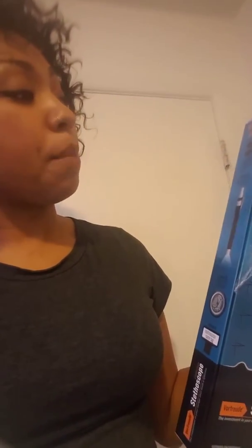I received bonus replacement ear tips, a free pupil light with batteries already included, a replacement diaphragm, and a stethoscope name tag — so this box was full of goodies and I absolutely love it. It's hypoallergenic, it's BPA free, and I am really satisfied with this product. I hope to use it for a lifetime.